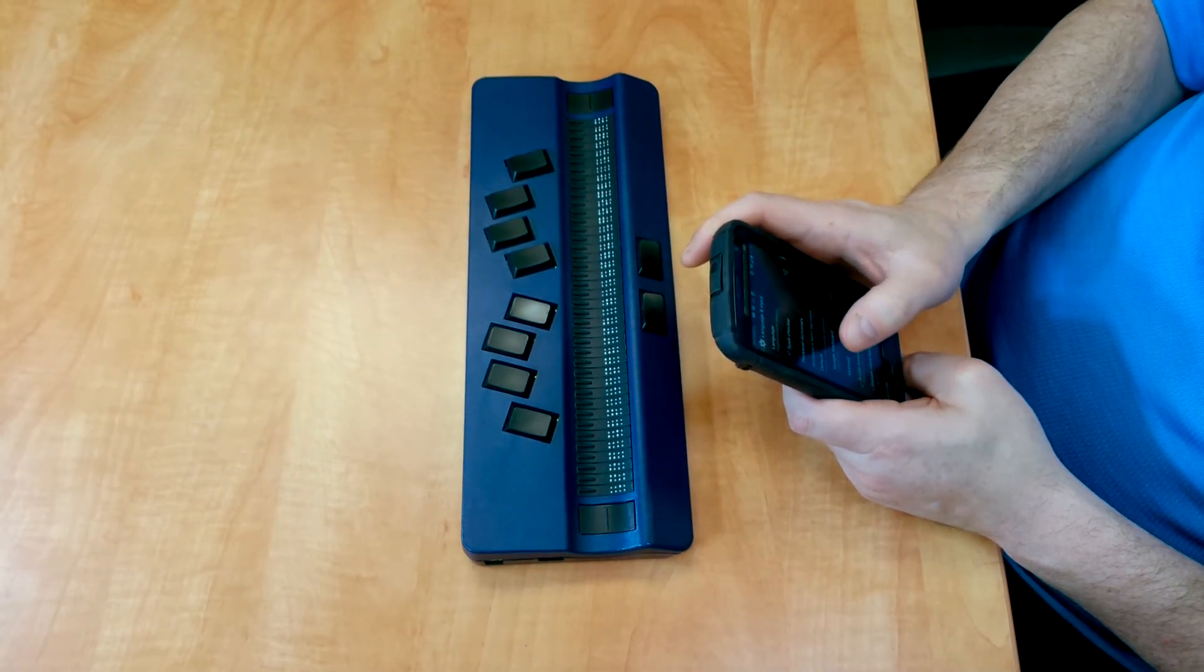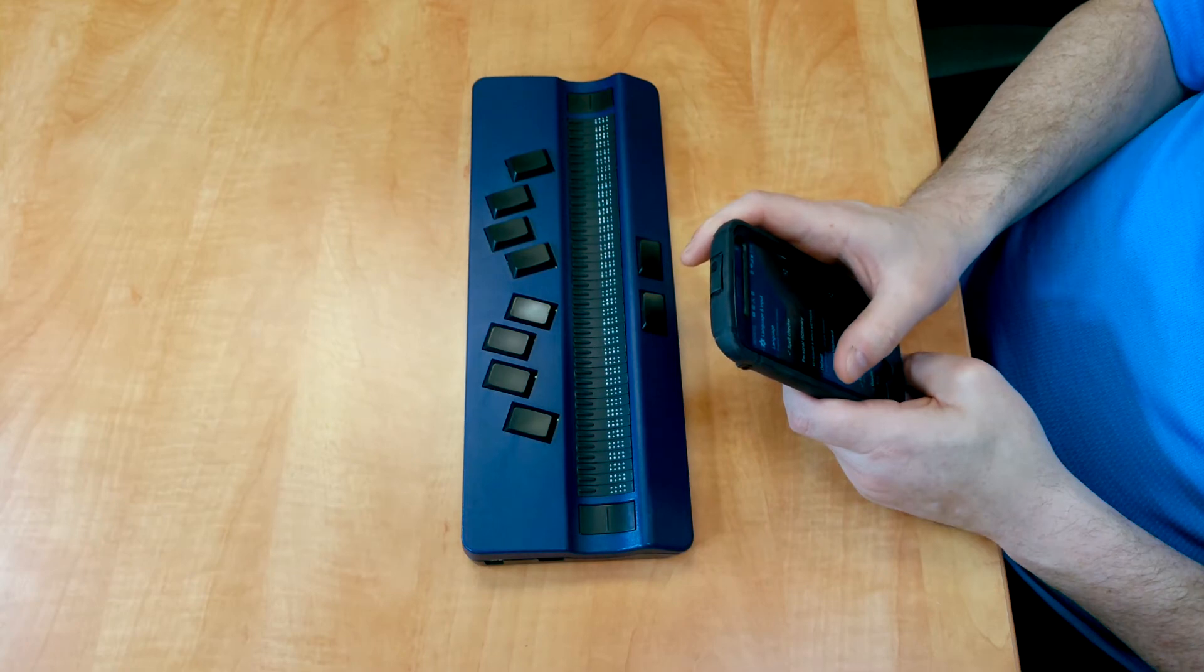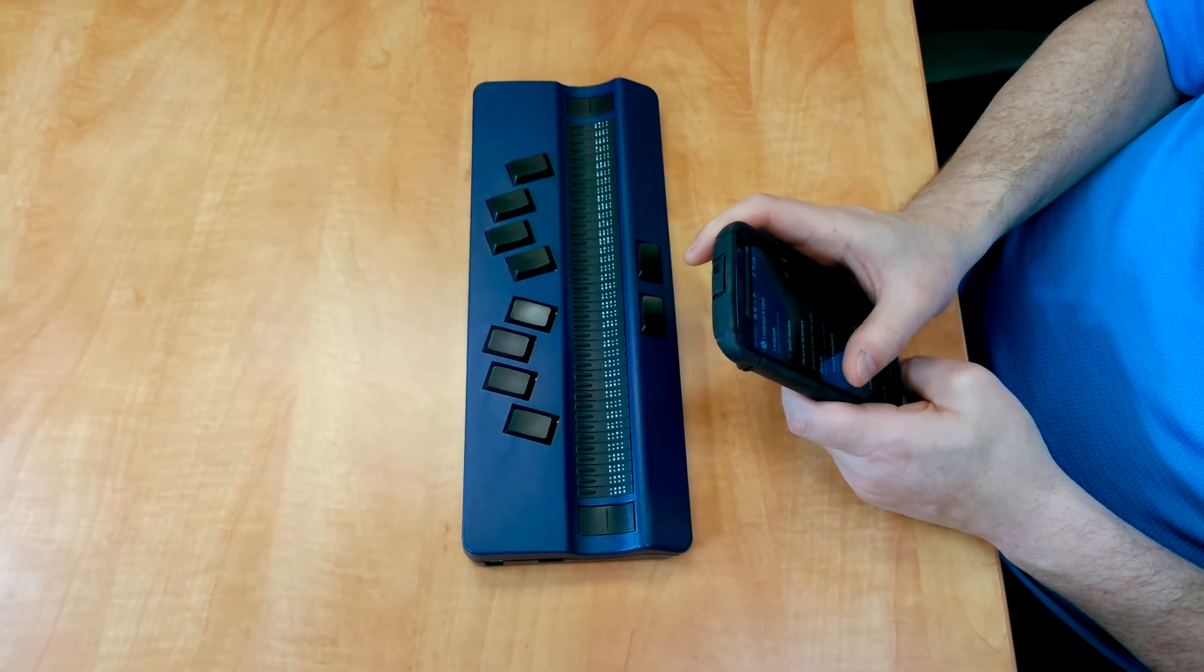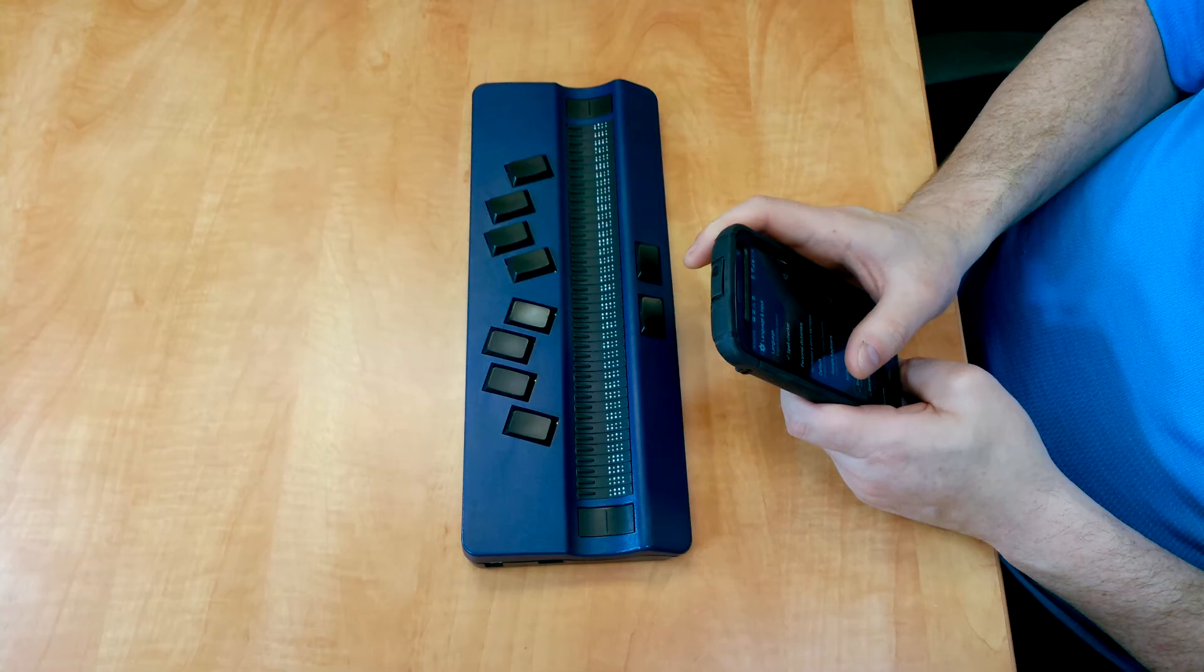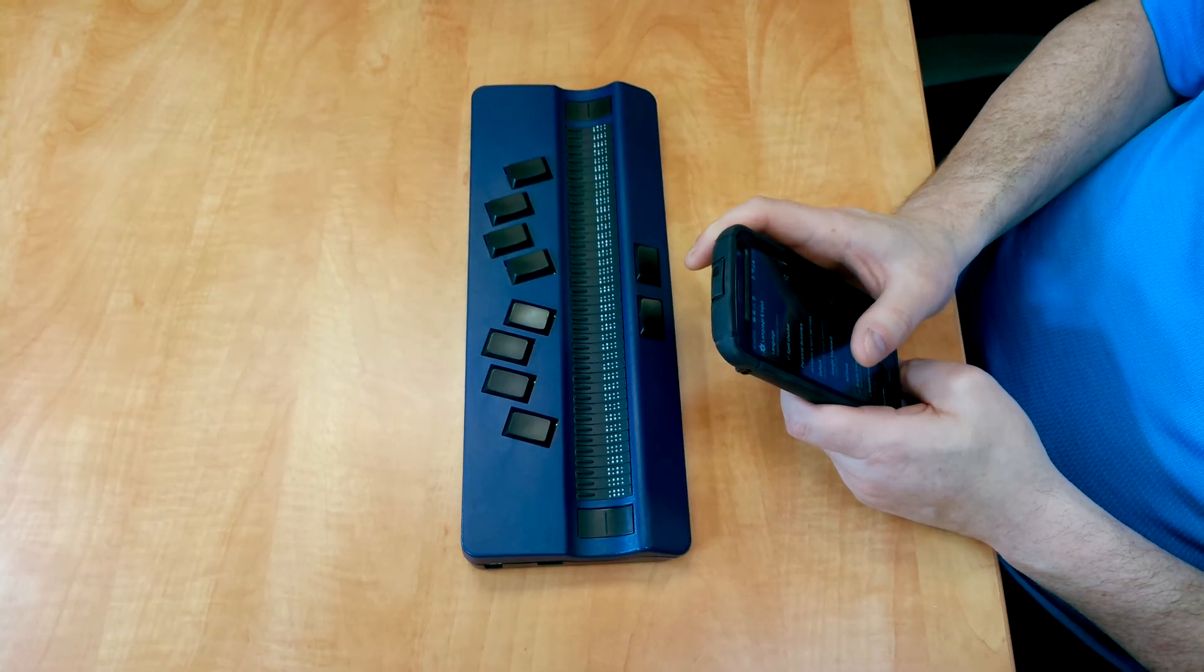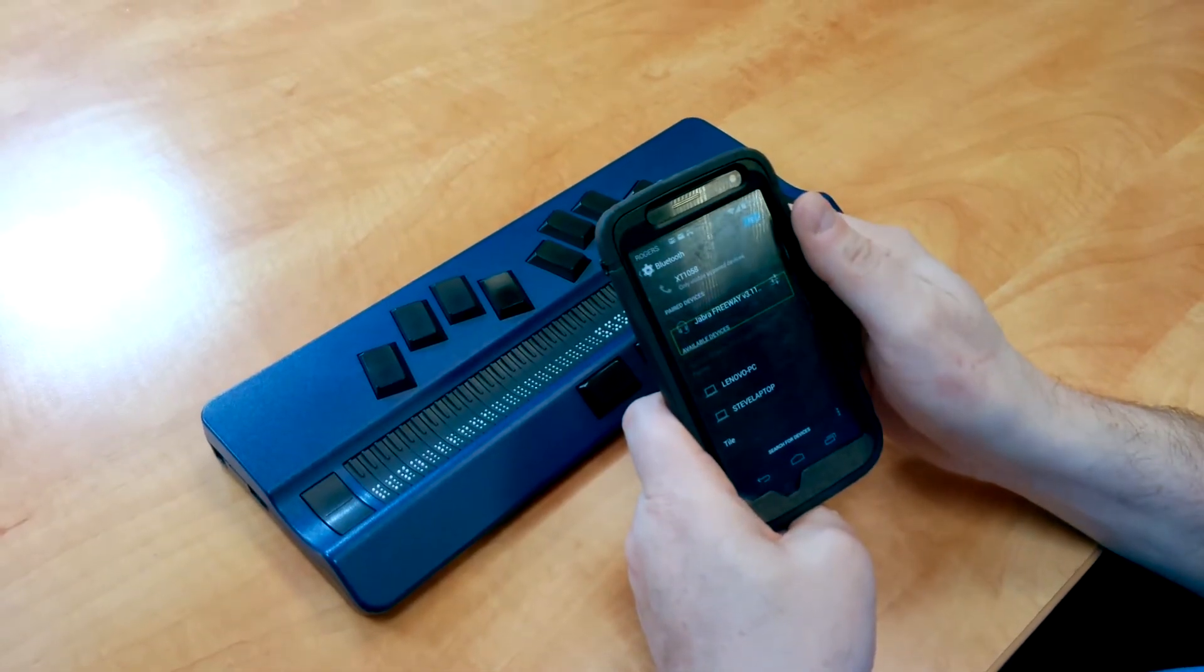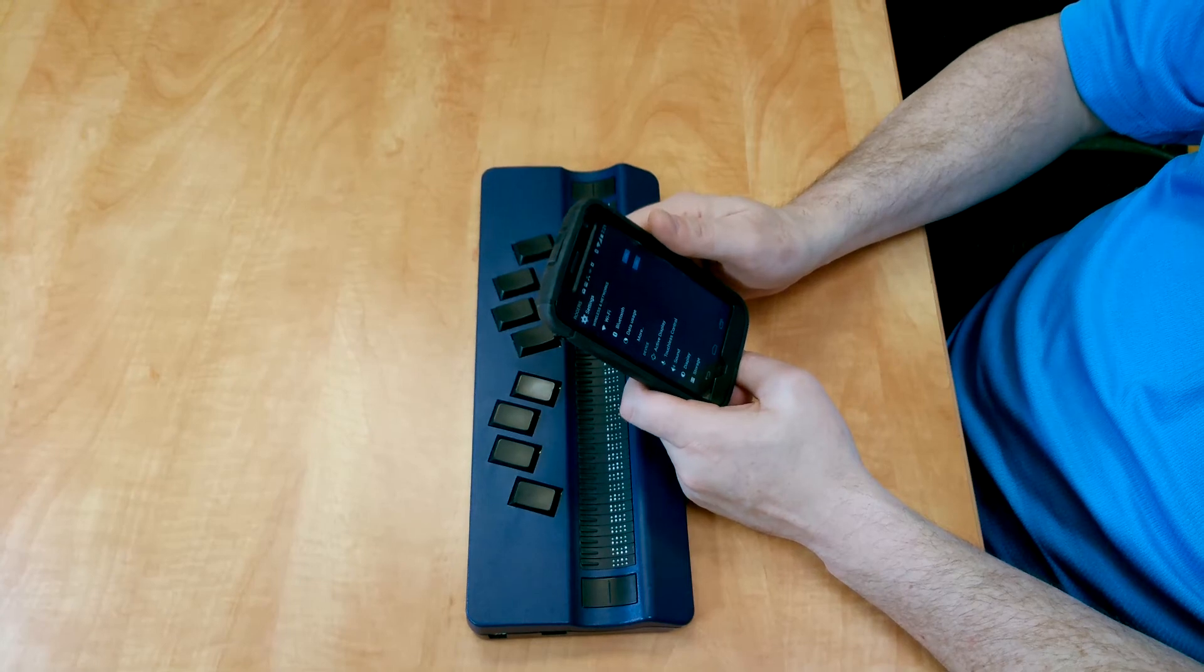Default. English. Us. Google Keyboard. Check. Braille Hardware Keyboard. Braille Hardware Keyboard. And we've got the Braille Hardware Keyboard. Keyboard Option. Check. I can now control my Android device using the Braille display.